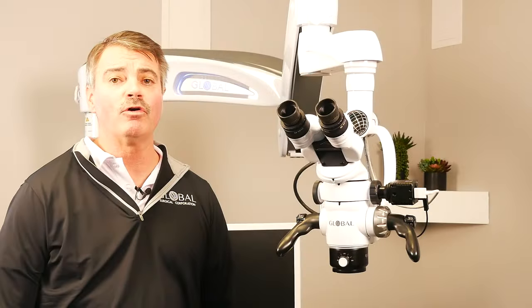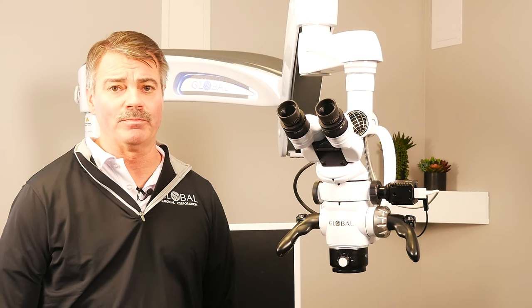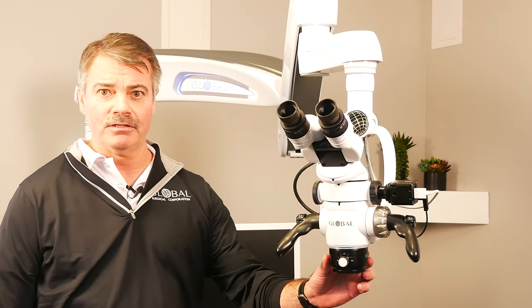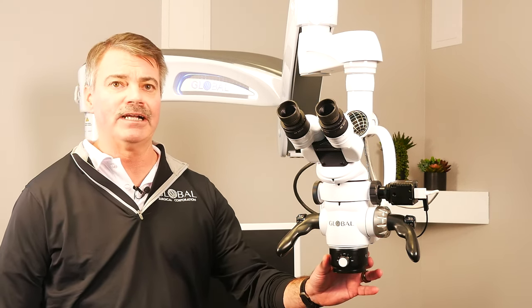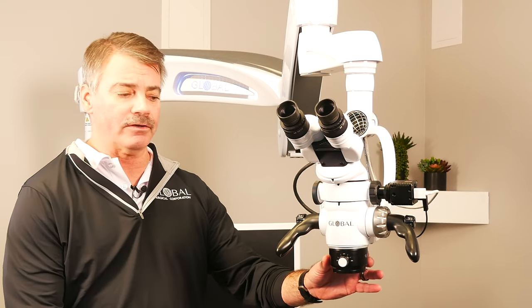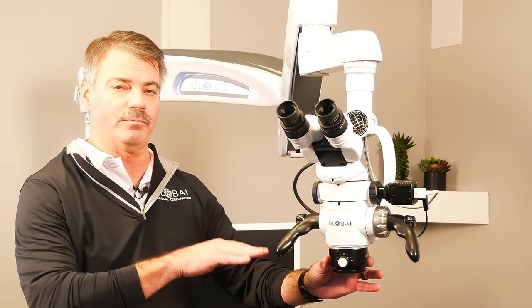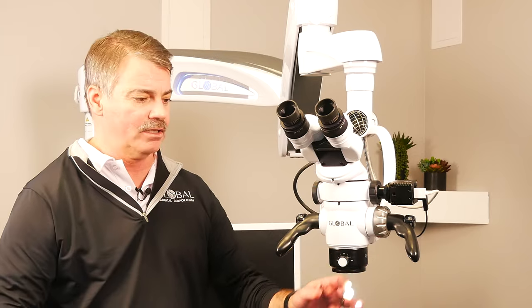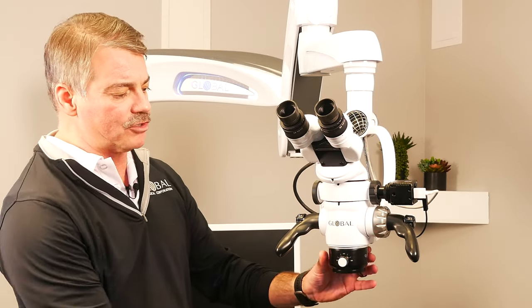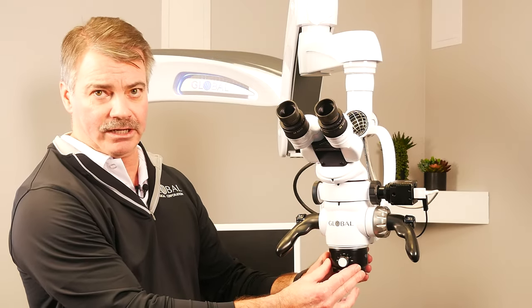Now we're going to go over some of the key components of the microscope itself. It all starts with the objective lens. The objective lens provides the focal length — how far the target is away from the microscope to be in focus. This particular microscope is using what's called our multifocal objective lens.